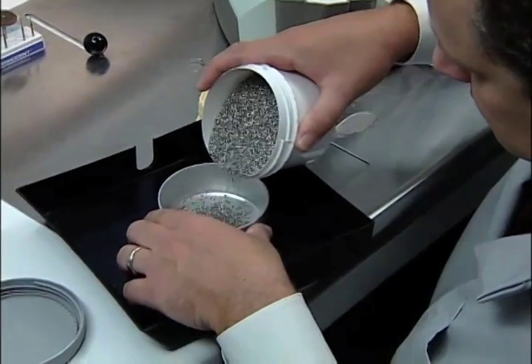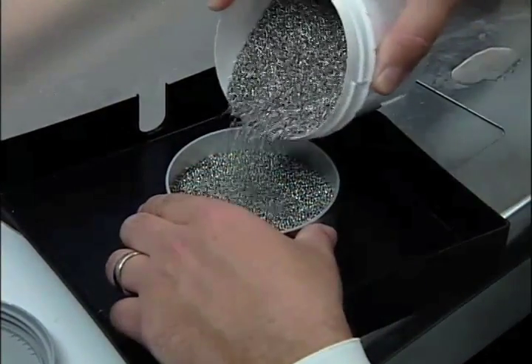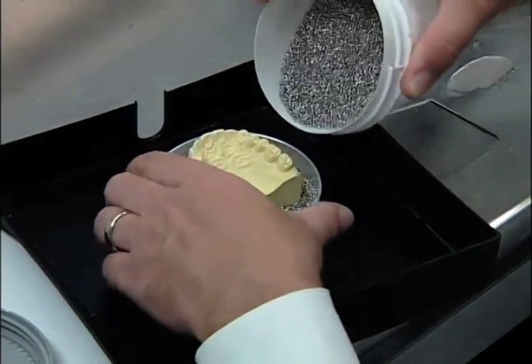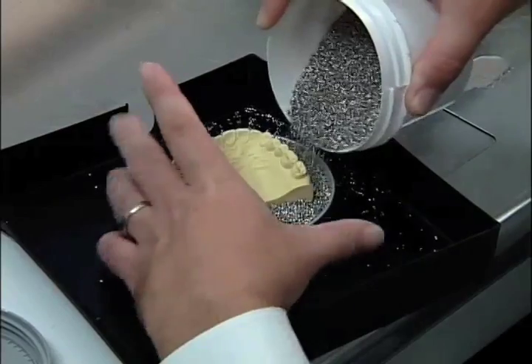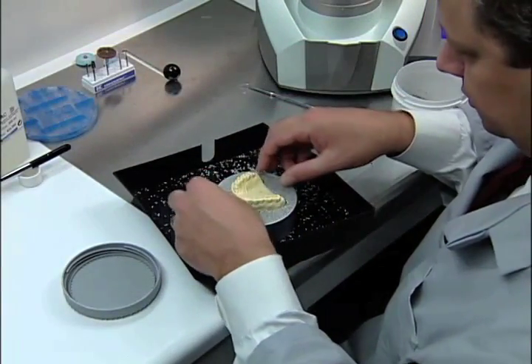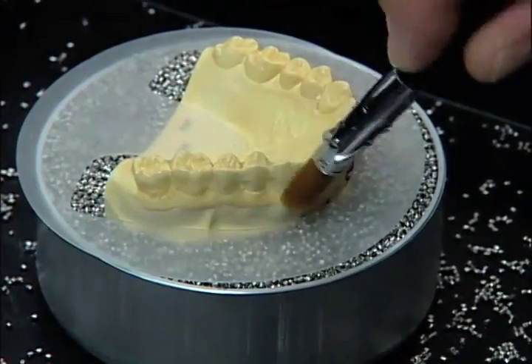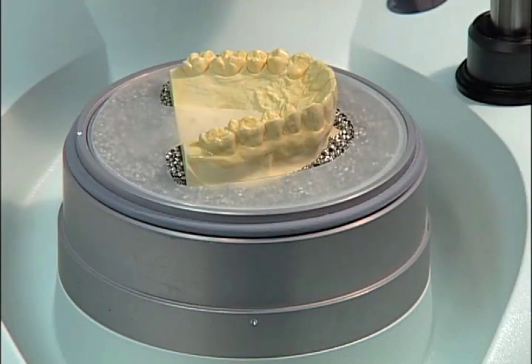Fill the thermoforming pot with granulate about three-quarter full. Embed the model, then finish filling the pot until full. Place the granulate cover sheet over the model. Apply a liberal amount of Isolac to the model. Place the thermoforming pot into the pressure chamber as shown.